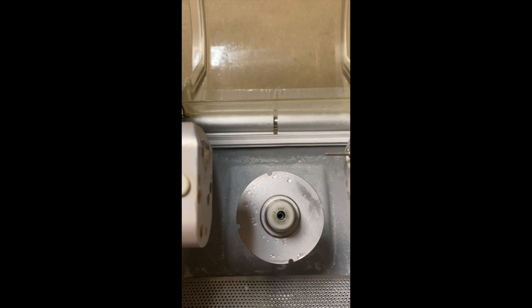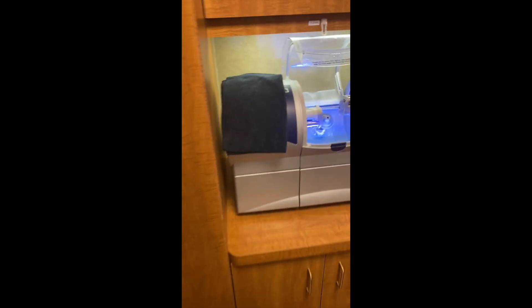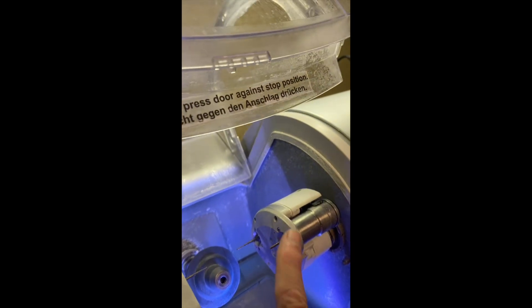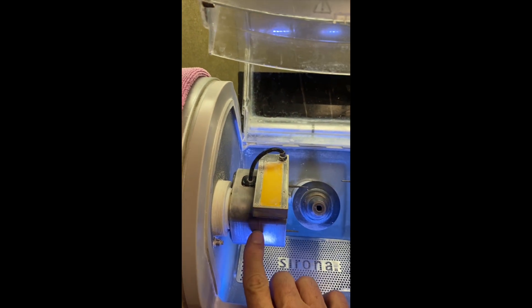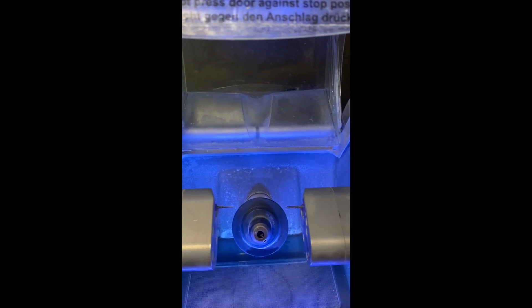This one here is a 2008 single motor where you've got to take the housing apart. If you have a newer MCXL — 2013 and up — the good news is you don't have to take the whole thing apart. You just get to these three screws and you can bring the motor out, same thing on the opposite side. So changing spindle motors in the newer model is an easier process. Here's an older in-lab MCXL — it has an outer housing and is even more complicated; you've got to get the scanner off and then remove the inner assembly. If you have an MCX, it's pretty much modeled after the MCXL — same area to engage — but they dumbed it down a little bit, though it's really the same unit.